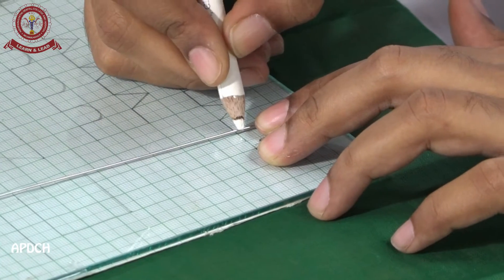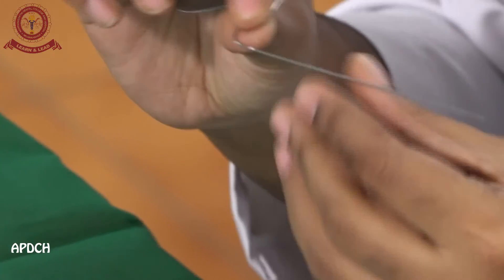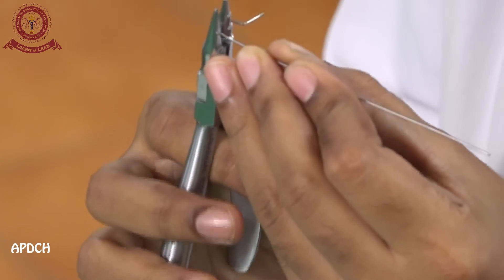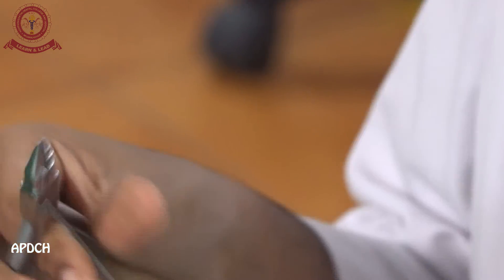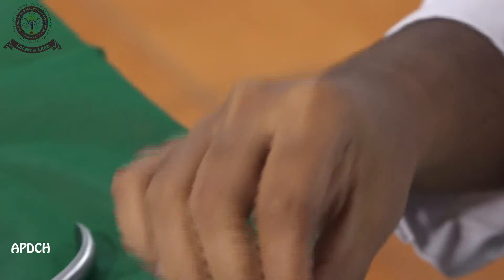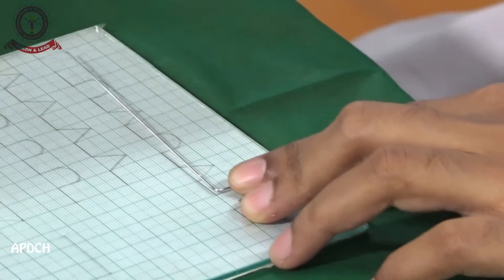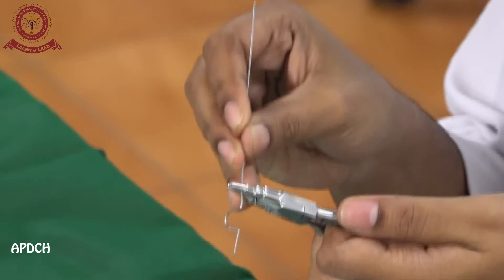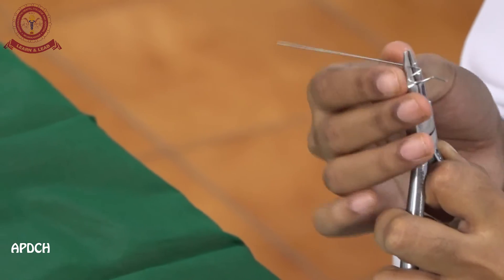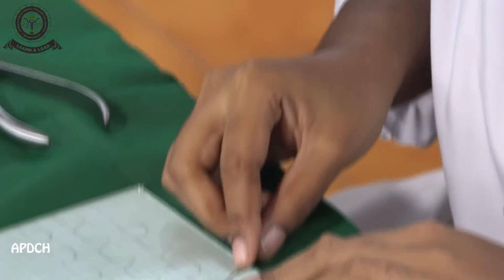Then for the V bend, we have to mark exactly the point where the 90-degree bend is made. Then the bend is given and checked with the graph. Again mark the point, then a 45-degree V bend is given. We have to check again with the graph.